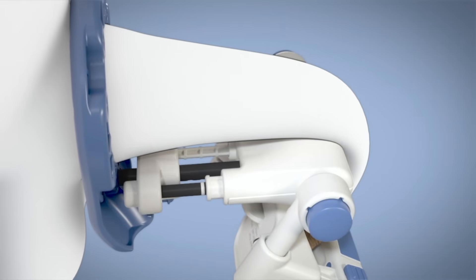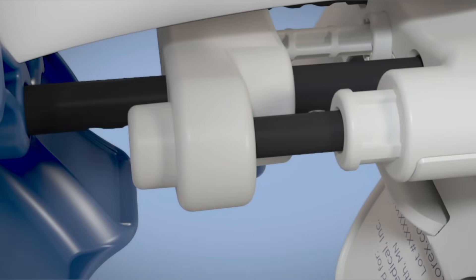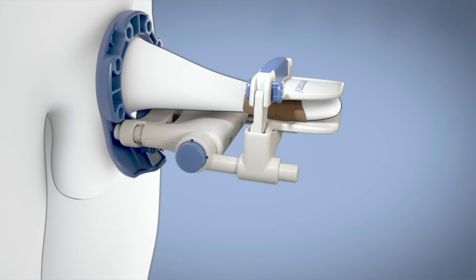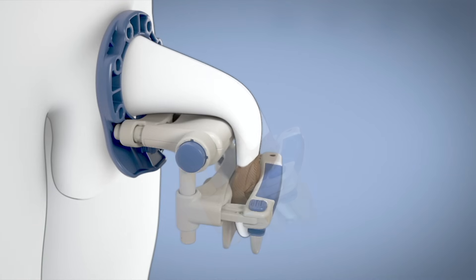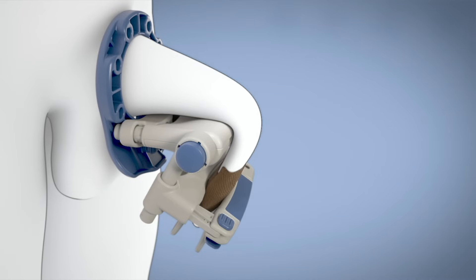Advance one or more notches on the extension rod to stay in the traction zone. Restorex includes four stops for opposite angular force. It may take some time to get comfortable enough to achieve the recommended third or fourth stop.